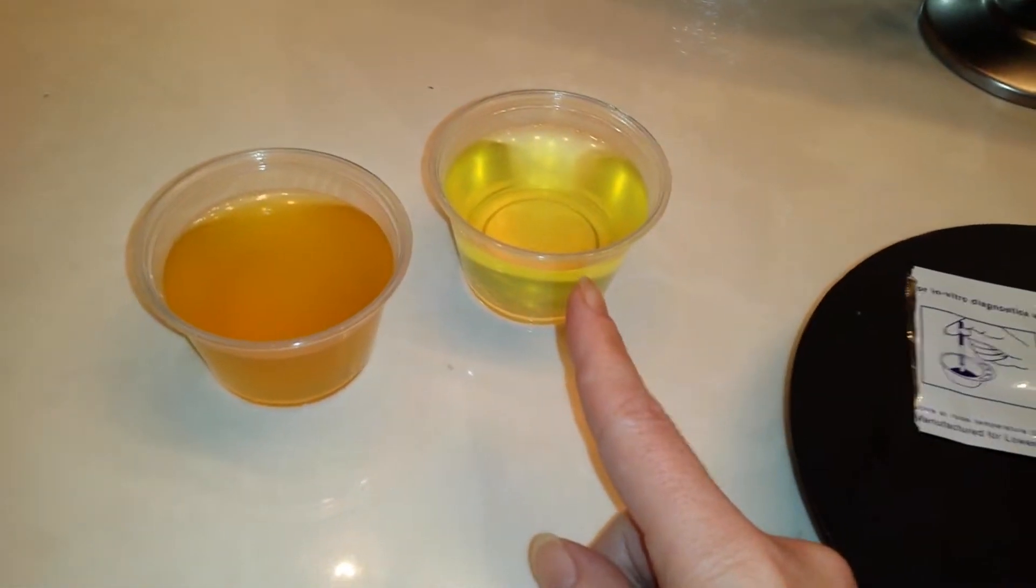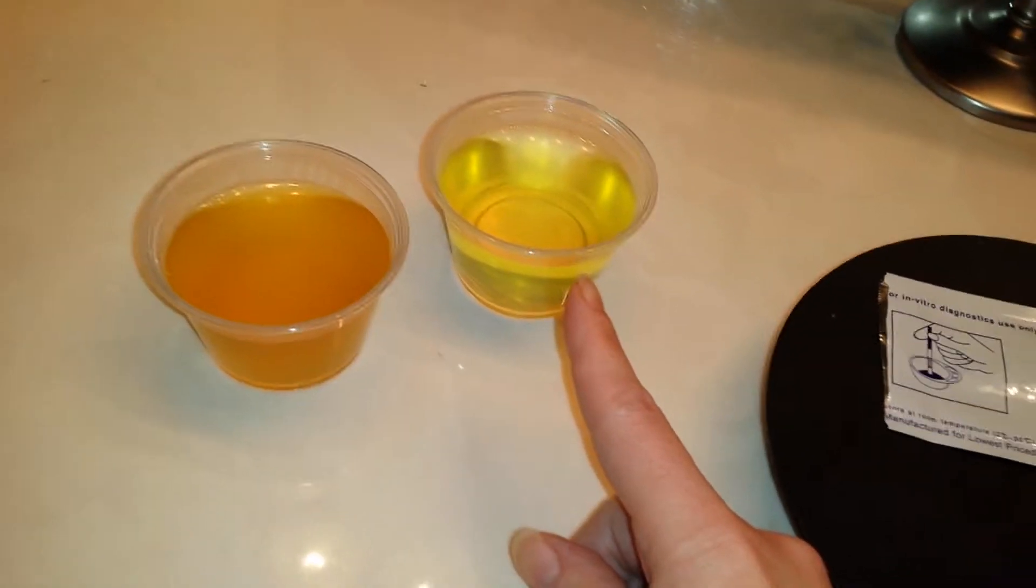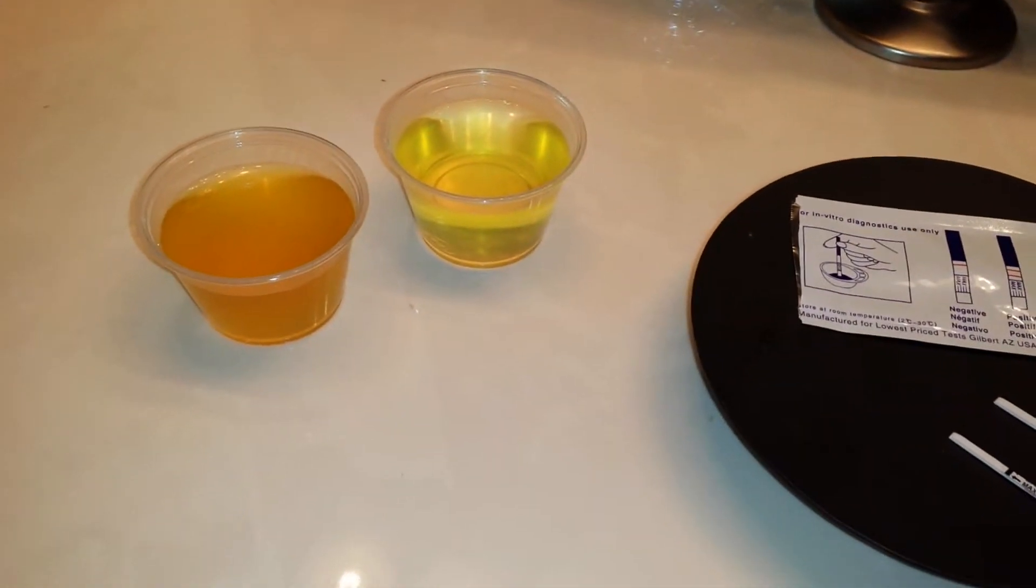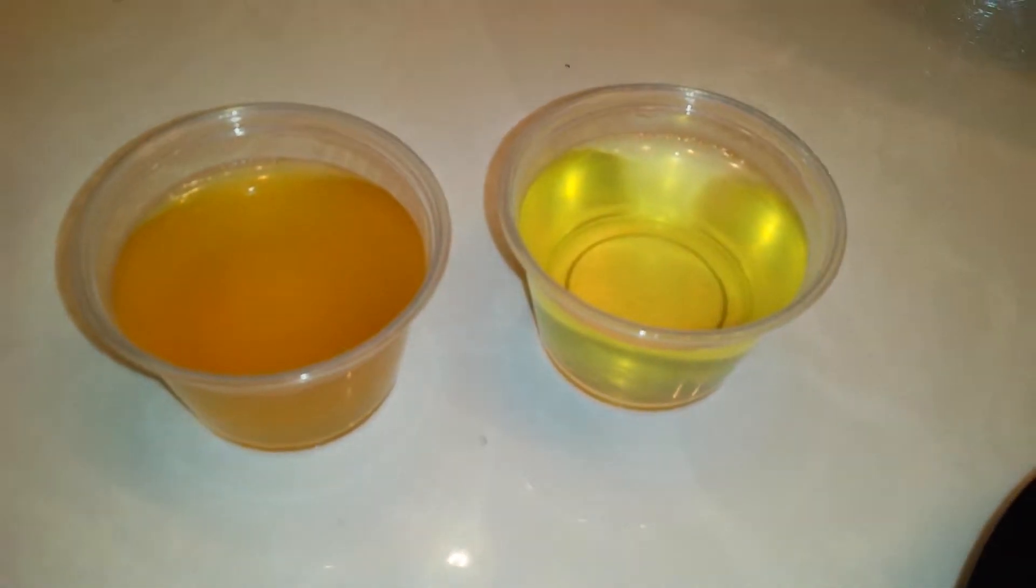This sample on the other hand was held for about an hour and a half and I drank coffee, tea, soda, and also a little bit of water just to show you what the difference was.